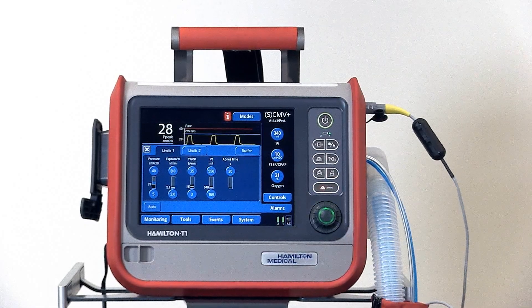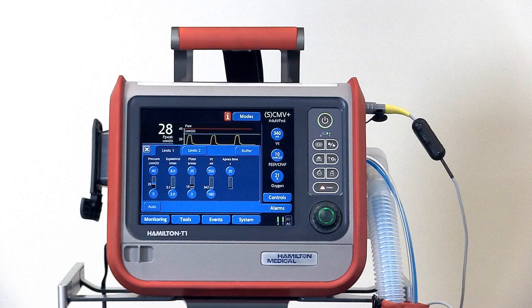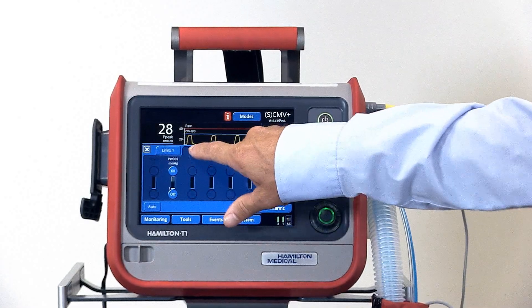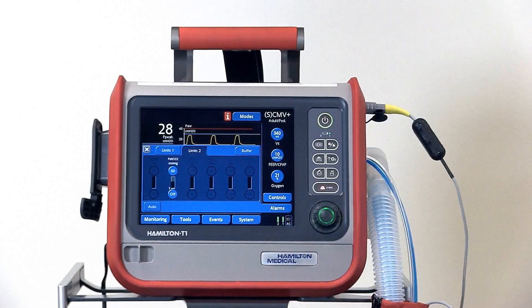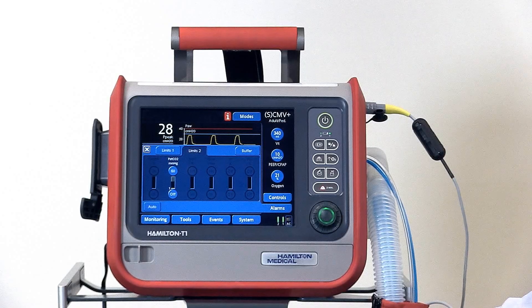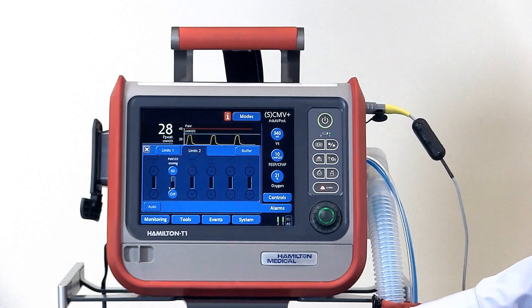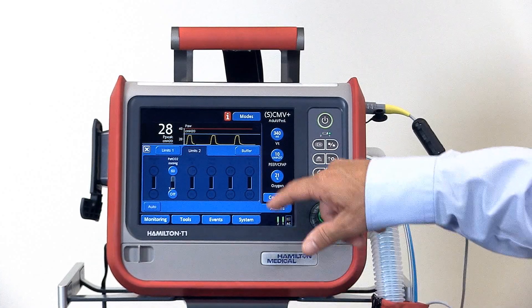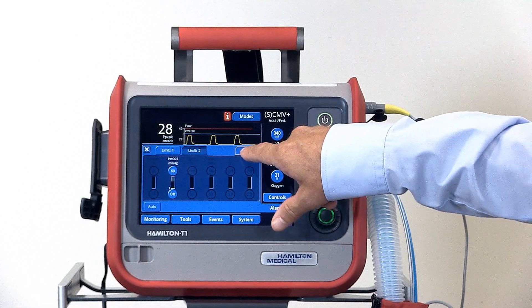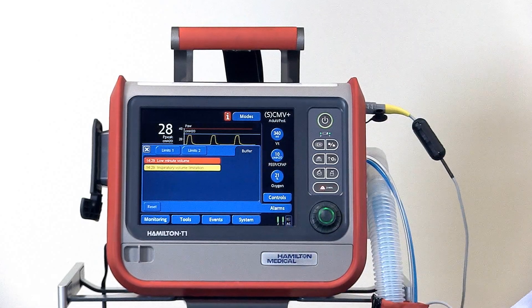Next is the alarms window where you may adjust all the alarms. There are two sections: Limits 1 and Limits 2. Limits 2 is where you'll find the end-tidal CO2 alarm and others, and there's the buffer window.